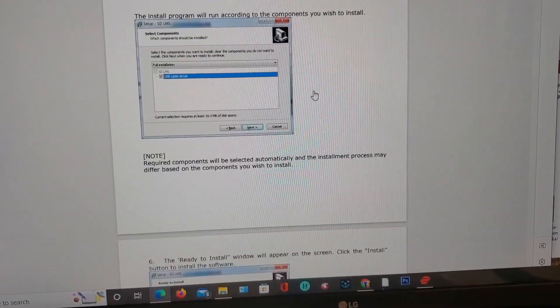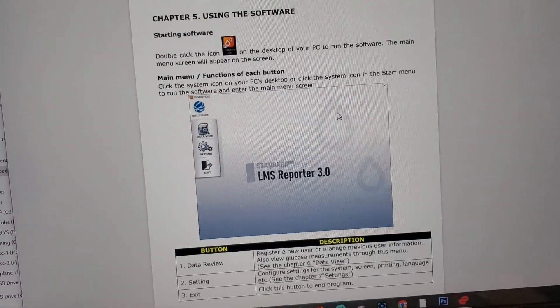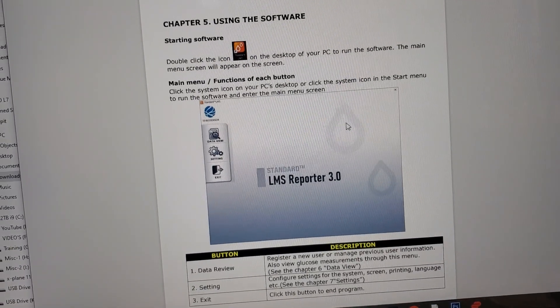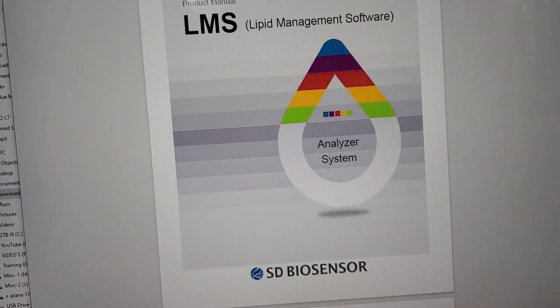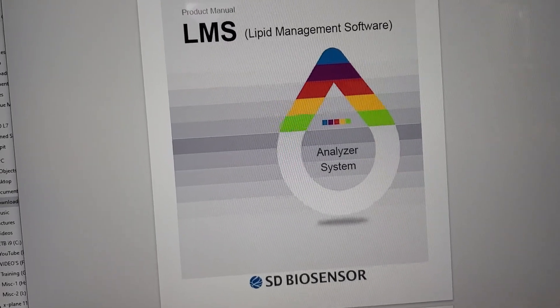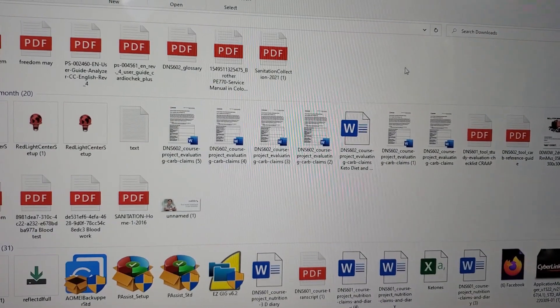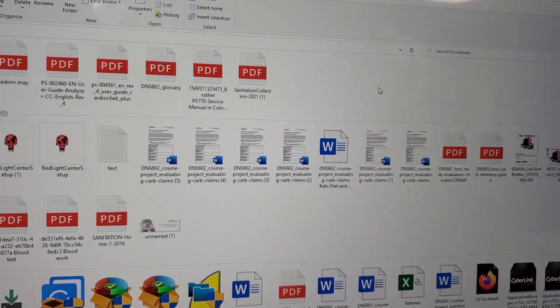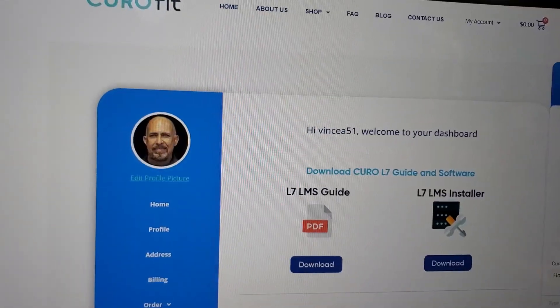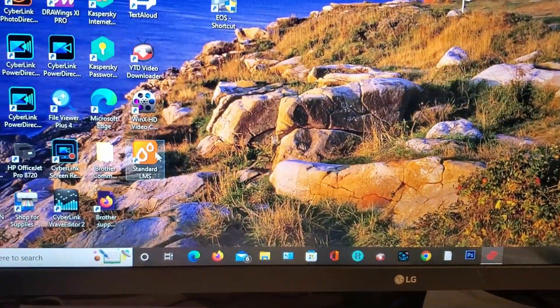That's 26 pages and it shows you how to install the software. What I found was that I had to try to install it twice and I had to restart my computer — I did it twice until I got it to actually work. Once you got it working it will load, and then if you left click it opens up.